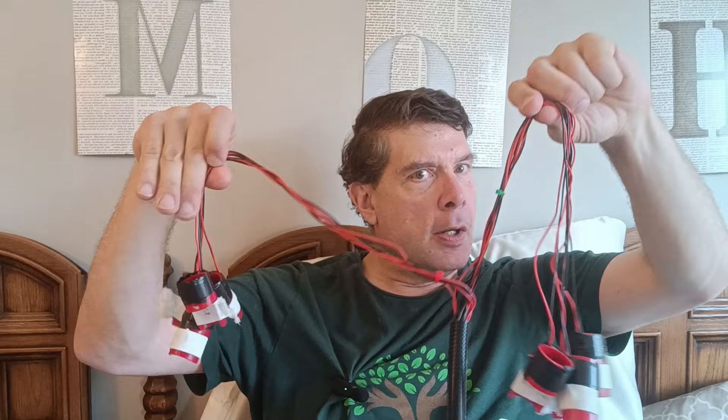Today is a very special day because I get to update you on my Parkinson's glove progress. They are not gloves — they are little finger pipes cut out of a hardened plastic pipe that used to be used on a ski slope somewhere, probably Whistler Blackcomb. My friend Trevor at Pine Mountain Railway did most of the technical hard work, and I believe we've made a breakthrough. We've resolved the wires breaking off the motors, resolved getting good contact with the fingerprint part of your finger, and now both hands are fully synchronized.